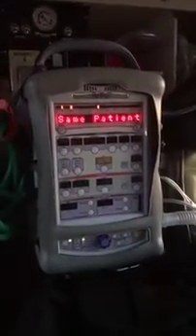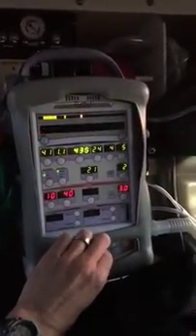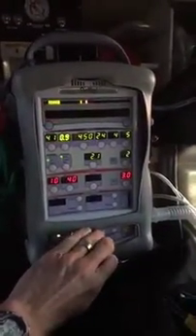When I turn on the ventilator it goes through its initial setup. I'll clear these alarms so they don't bother me. I've already got the test lung set up and I'm going to say same patient, intubated, because I was toying around with this earlier. Let me get my tidal volume set to a more normal physiologic rate — I was messing with inverse ratios and all that craziness.